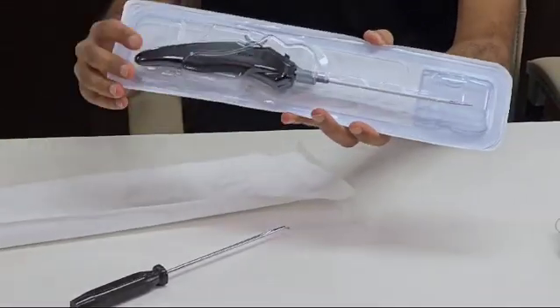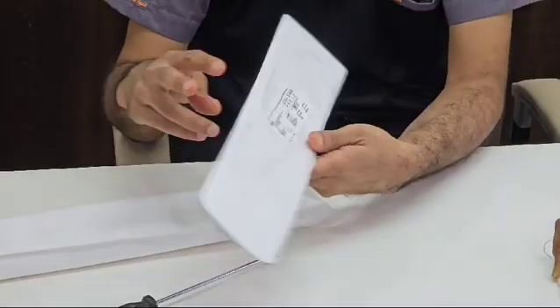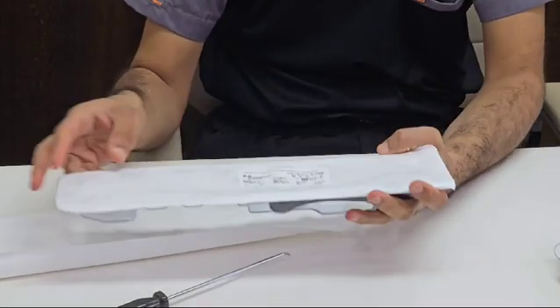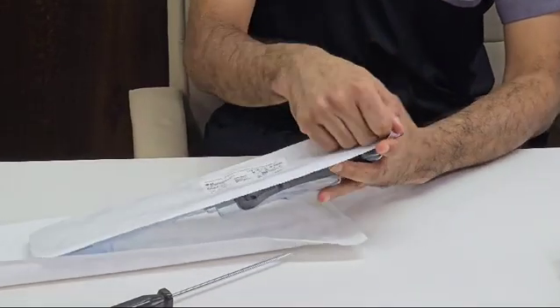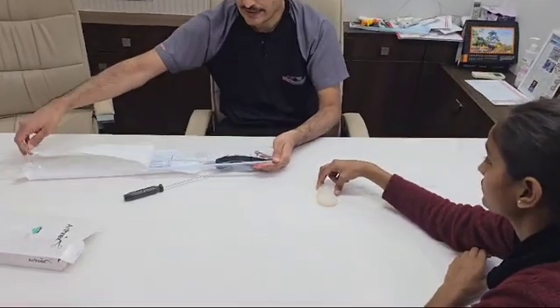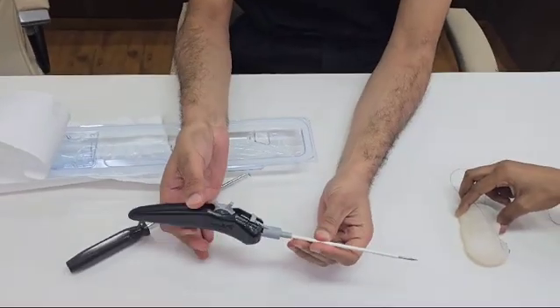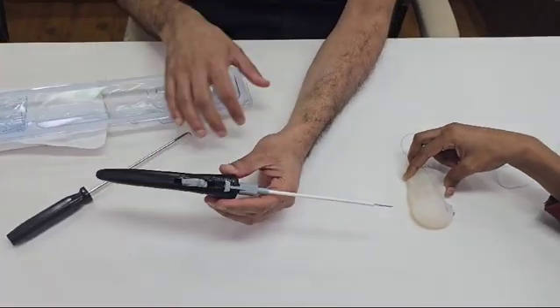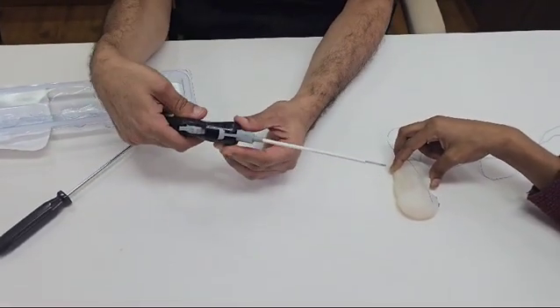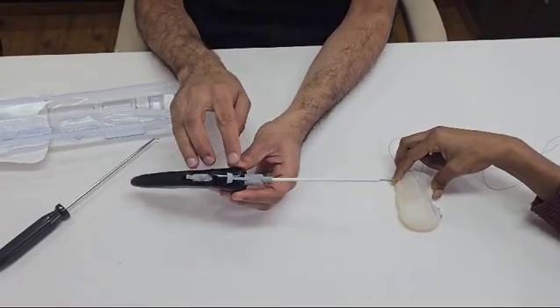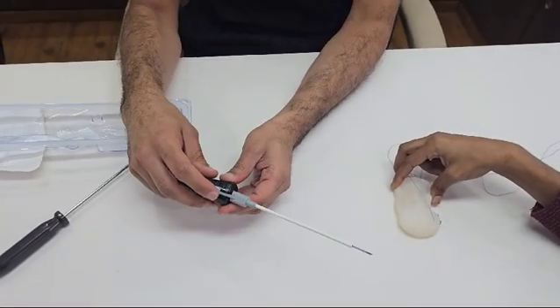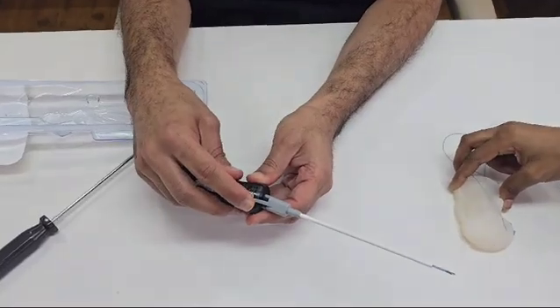So this is the original implant, and once you unbox it, it comes up like this. Now this is a 12 degree implant, 12 degree curved up implant. There are some particular features - the handle is very ergonomic. There are markings here by which you can actually change the depth of penetration from 10 millimeters to 18 millimeters.